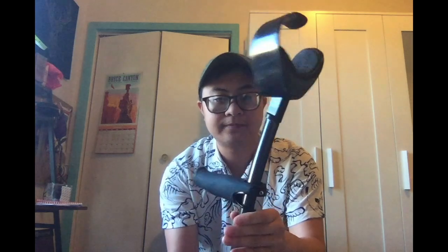The third crutch I have is the newest one — the IndusMed crutch made in Spain, customized in Philadelphia by Thomas Fetterman, who makes the best crutch tips on the market. It has a super similar three-quarter cuff. It has a grip that you can move up and down the carbon fiber tube. The tube is not cylindrical — it's actually wider here and thinner in front — and that gives it a really slim profile, which is really cool.